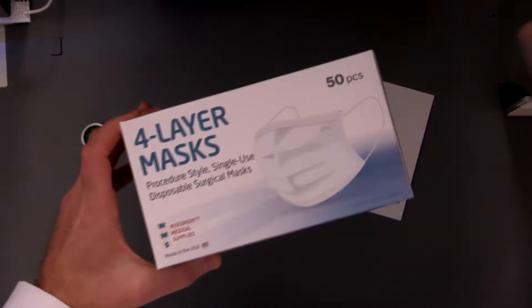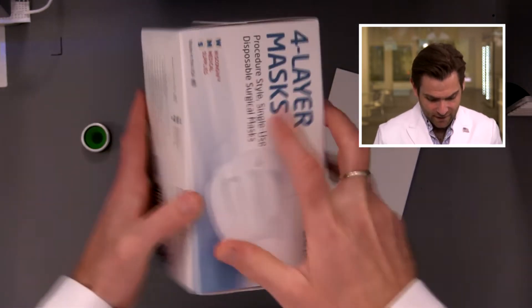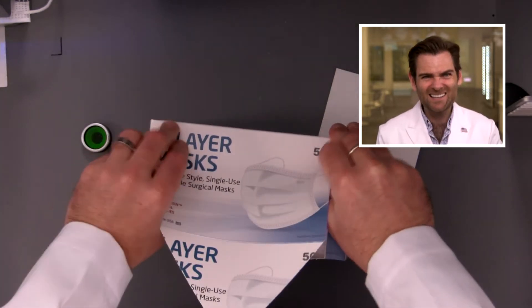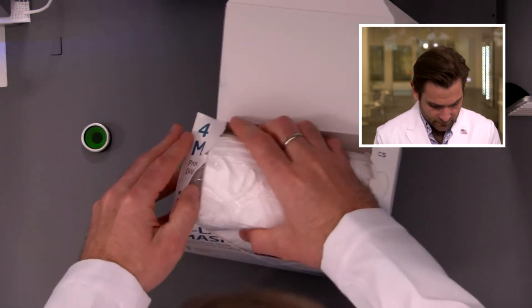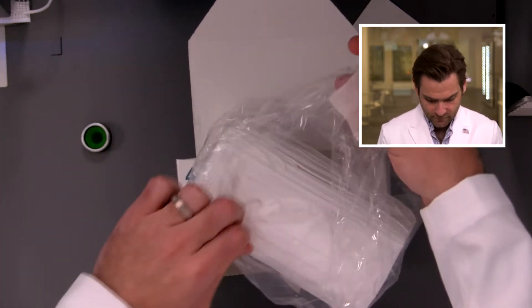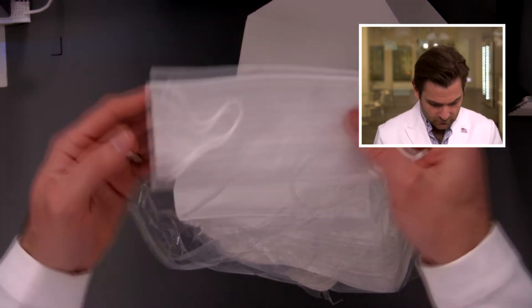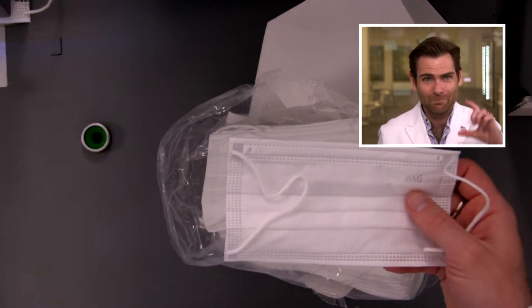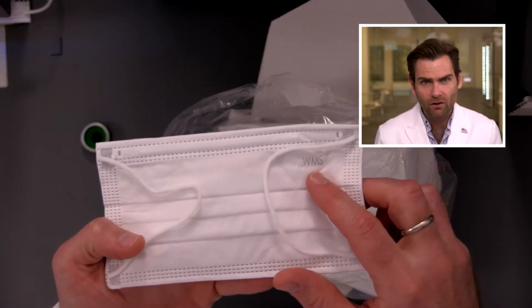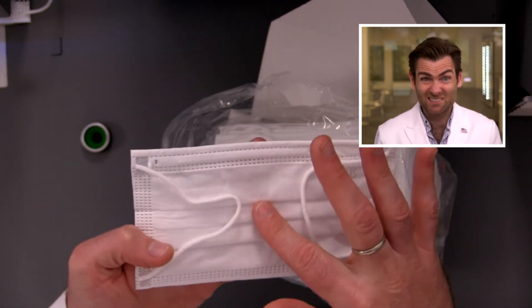Let's take a look at the box. I like the design — it's very medical looking. I like these kinds of boxes but they don't always work for me. This is nicely sealed in there, but it's a loose bag, so when I open this the bag is open, which means there might be some smells in here. Let's take this out — this is a nice looking mask. They are folded in; that's what's making the box that much taller because the ear loops are folded in. It's a little wrinkled — white on white mask. I love their little logo right there, that's a nice little emboss.